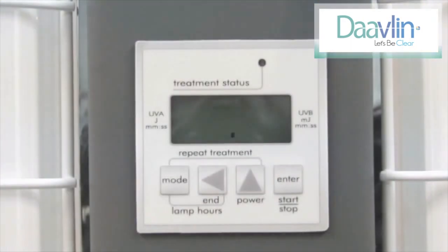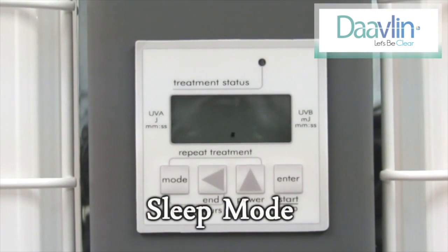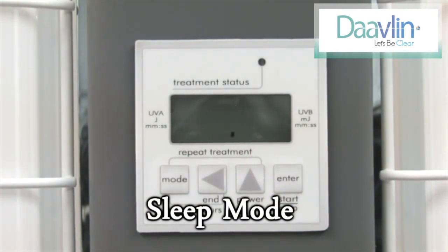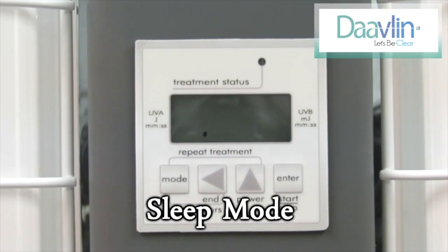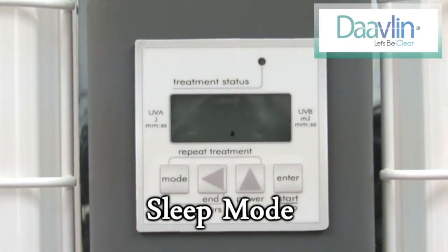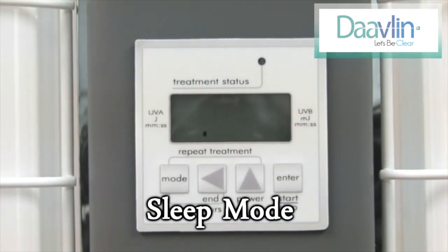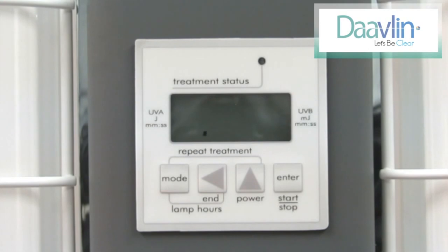Once you know your dose and have calculated your backup time, you are now ready to program your treatment. The device will always start in sleep mode. Sleep mode may be represented by a dot shifting back and forth across the screen, or for units equipped with FlexRx, a numerical representation of your remaining exposures. To bring your unit out of sleep mode, press the enter key one time.